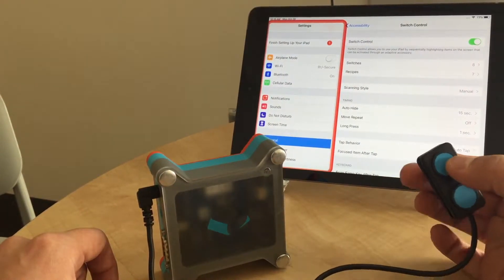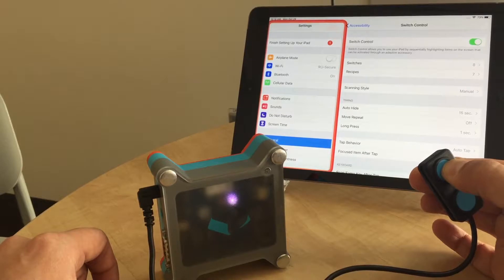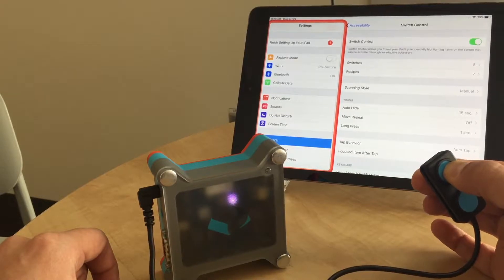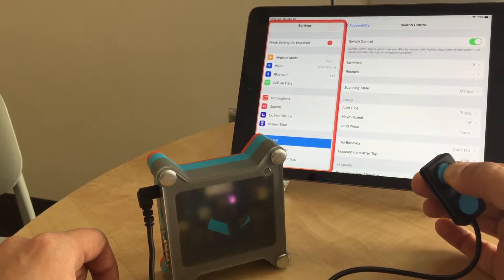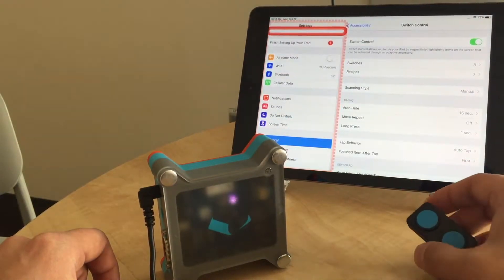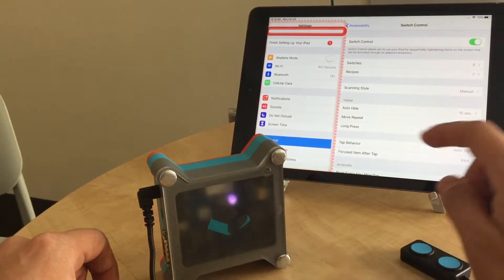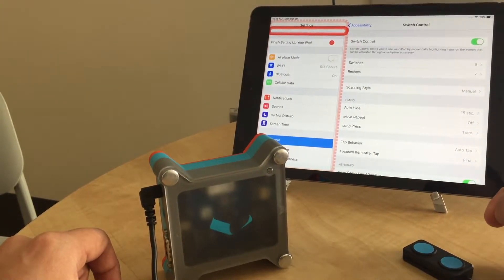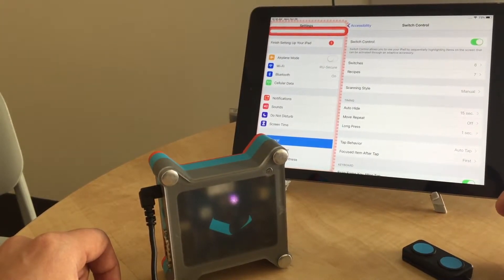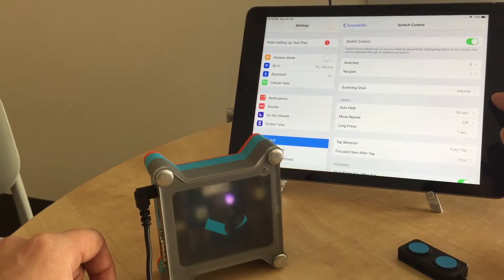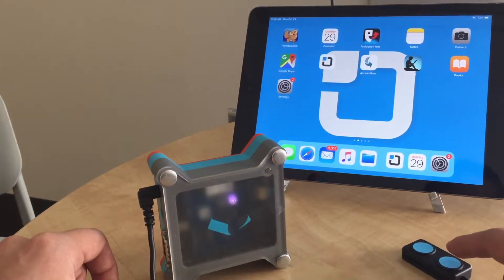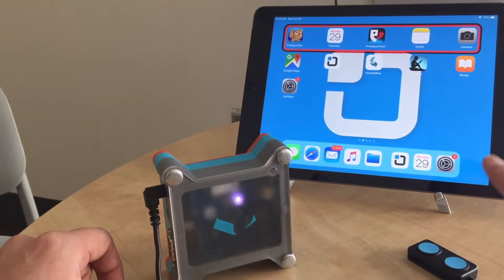It's one second but nothing happens. As you saw, when I released the switch, it was actually selected. So that means the settings are not correct.